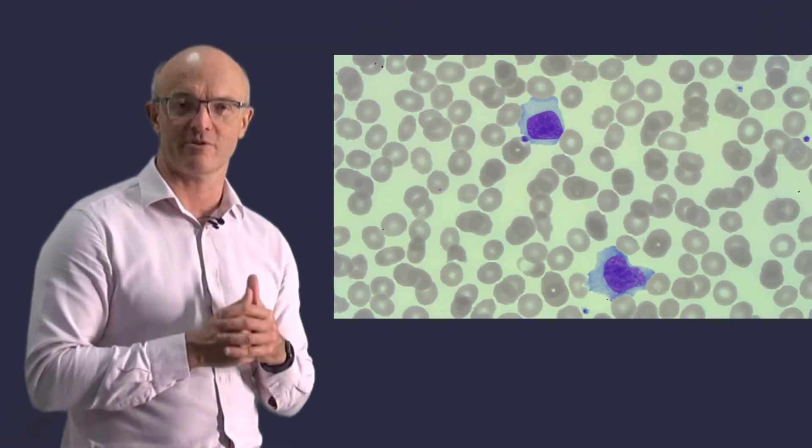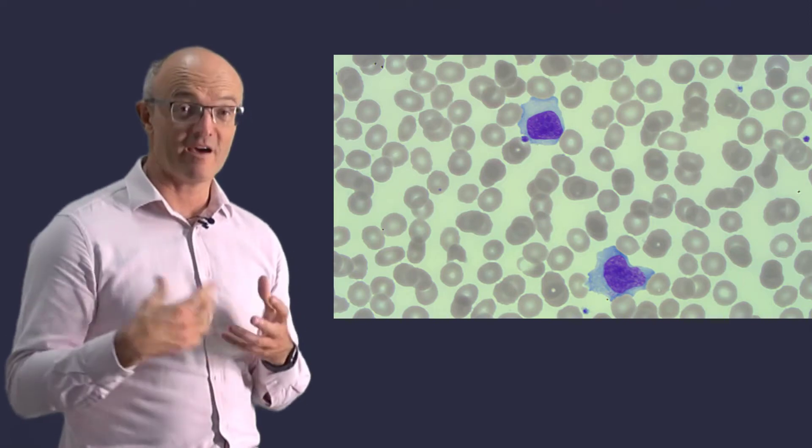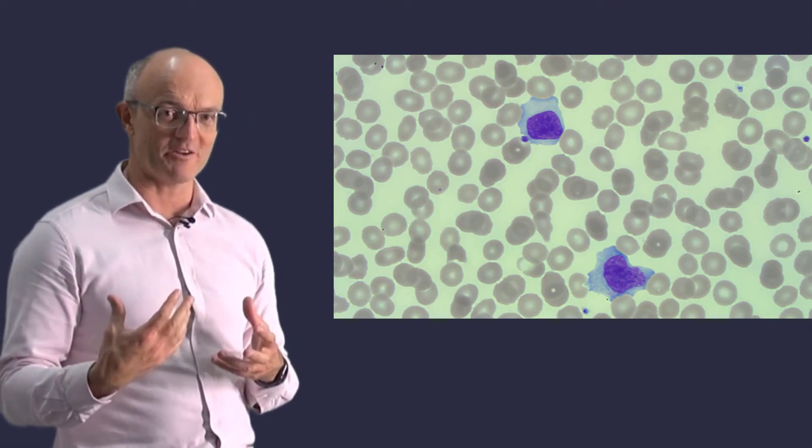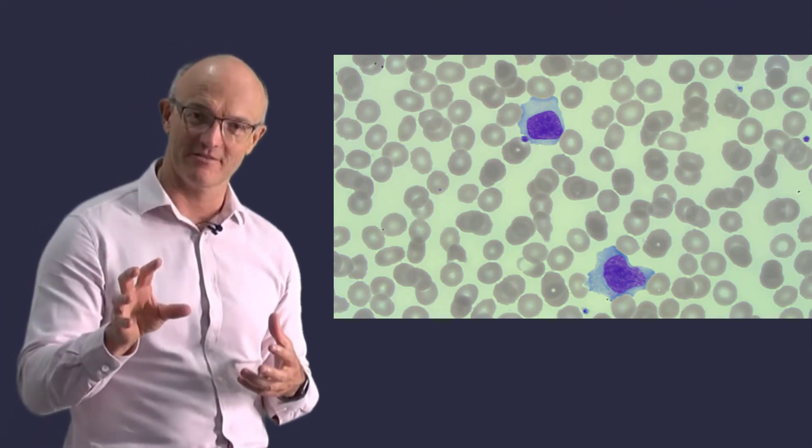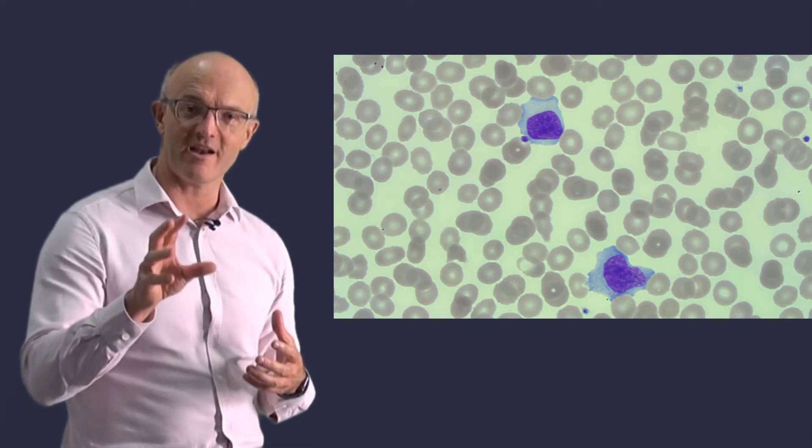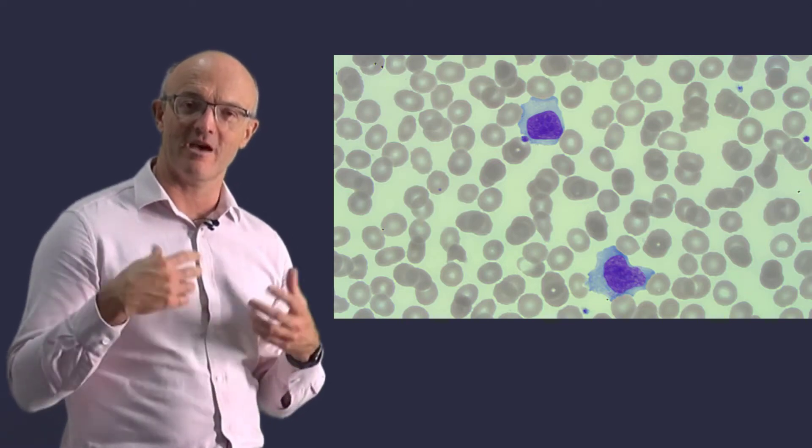Do you remember back to the start of this series? I certainly remember the sweat on my brow when as a young pathologist I was called in after hours to look at a blood film with query acute leukaemia. Now that I'm old, a lot of what I do is pattern recognition. But you, starting out in the lab, need to learn a method.